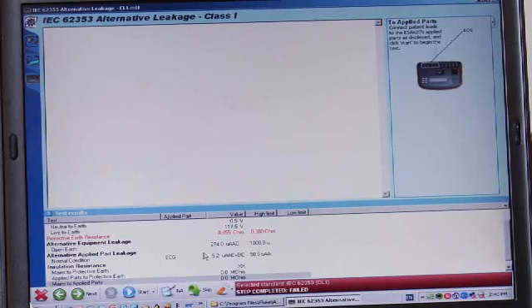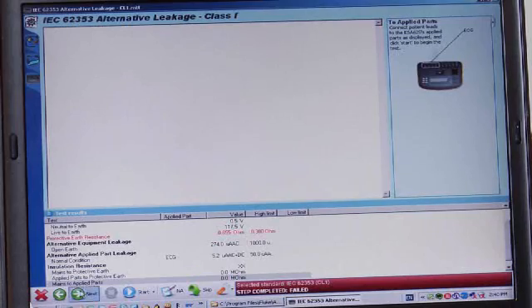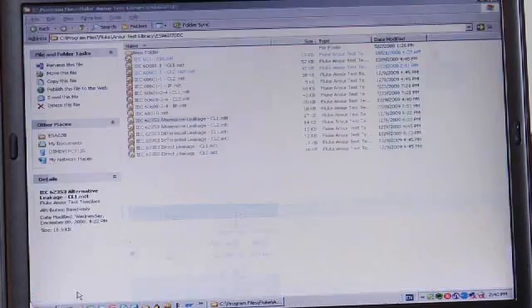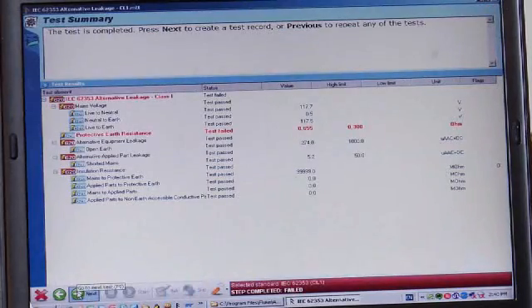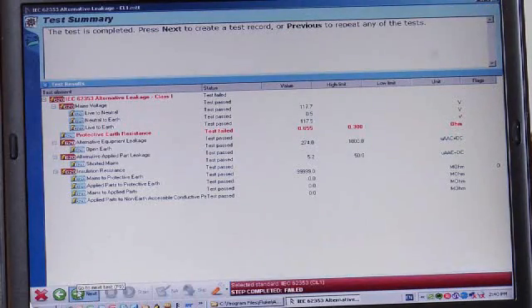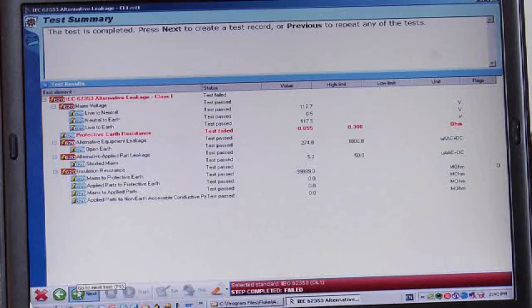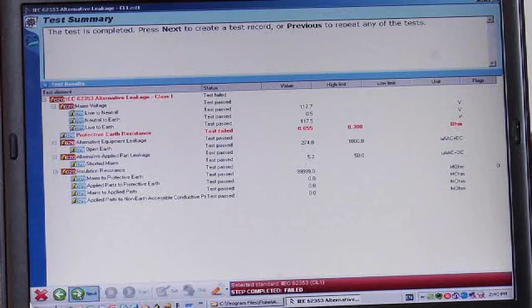We'll proceed now to the test summary screen where it will report all of the tests that we have done, all of the test results against their testing limits, so that we can determine what we need to do next.